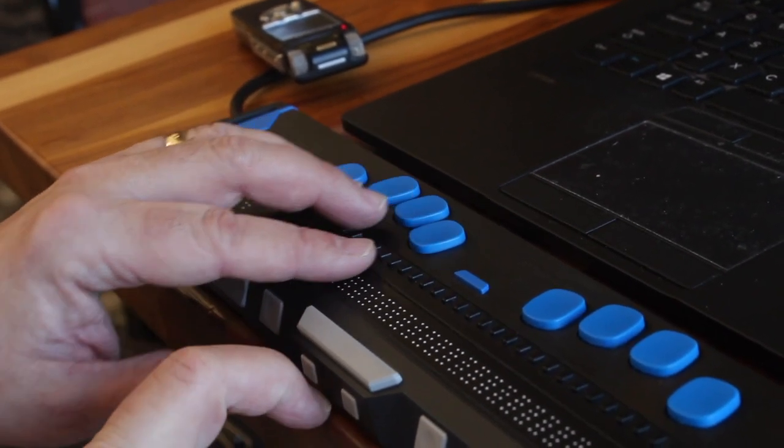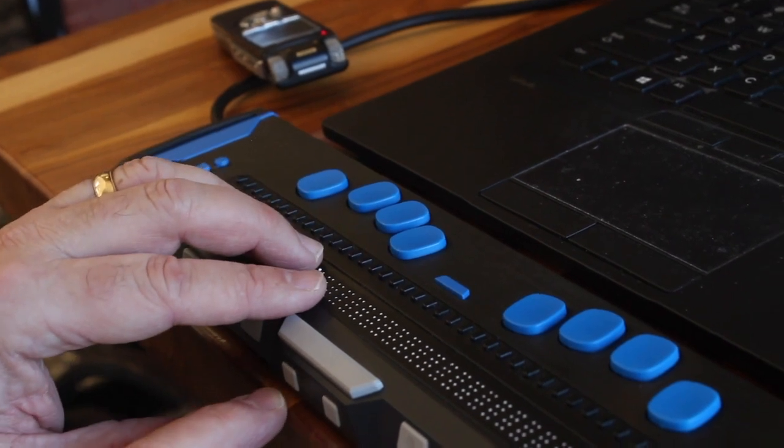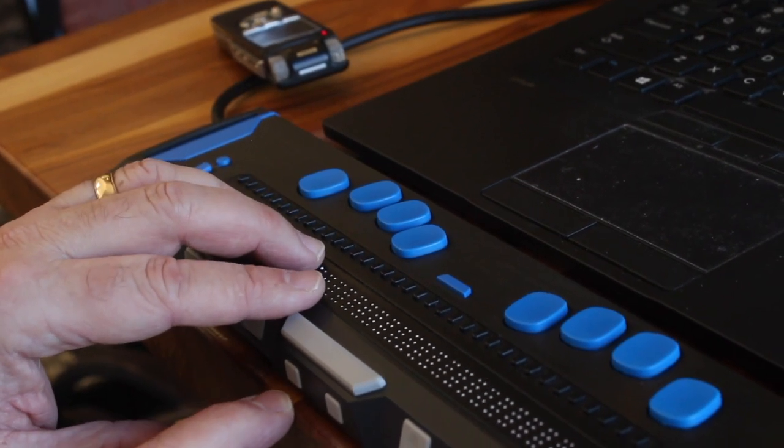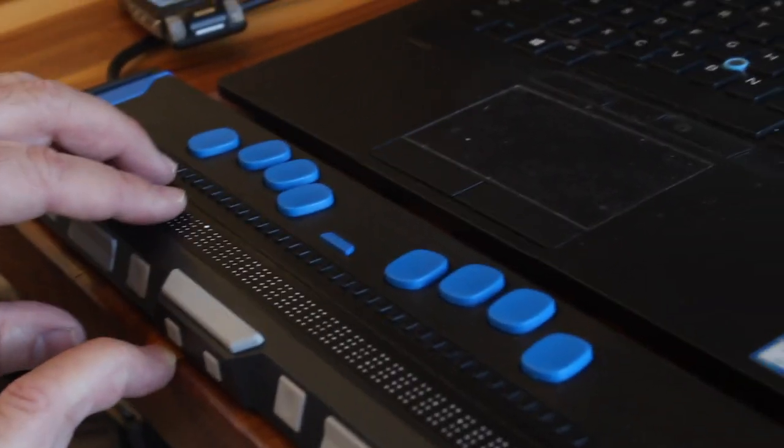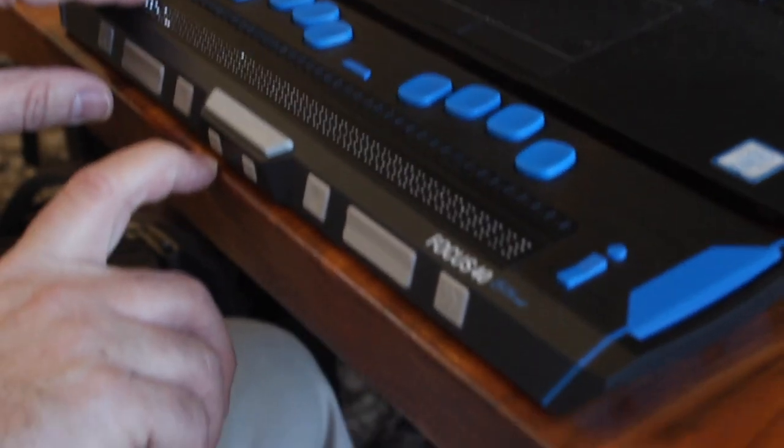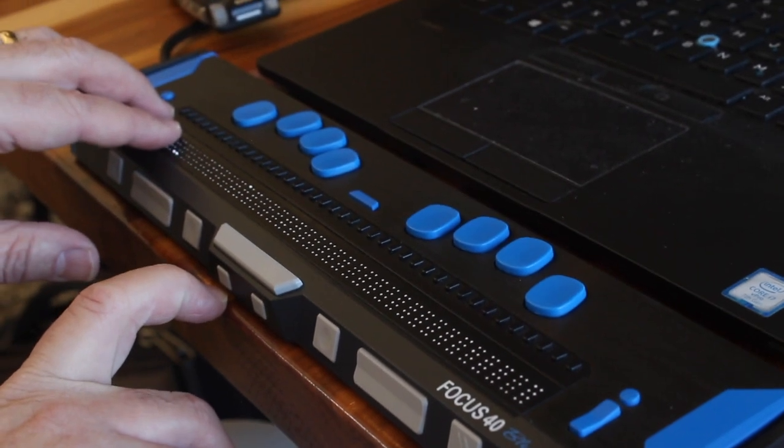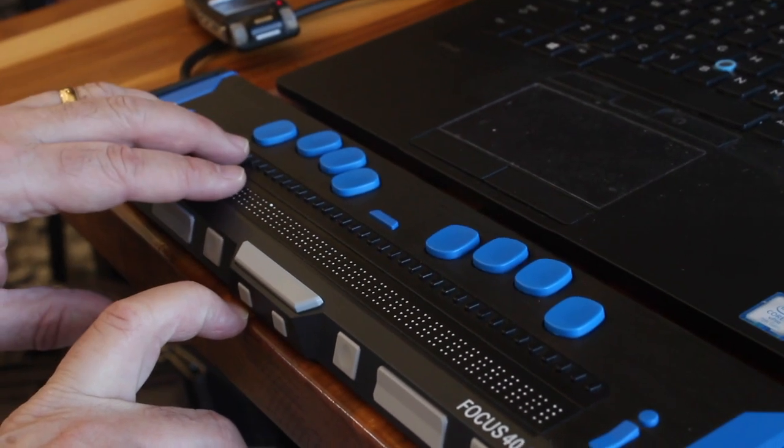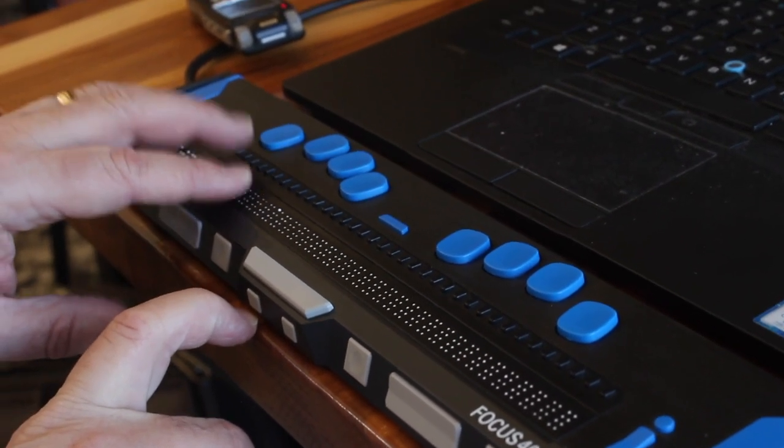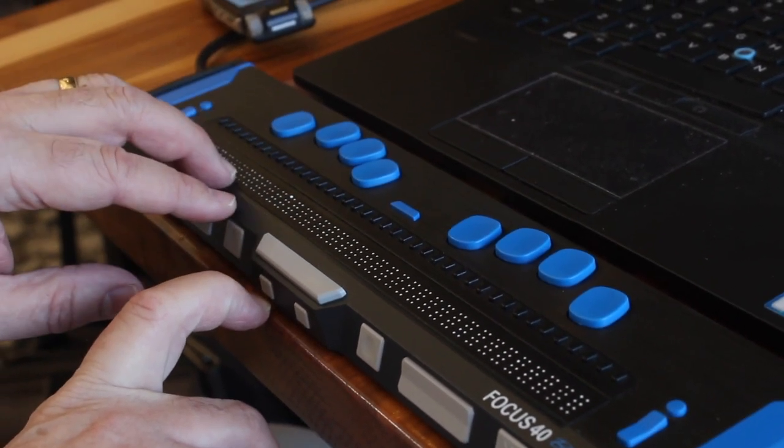Once one-handed mode is invoked, and I mentioned this a moment ago, you must end any command, any character inputs that you wish to perform with the space bar.